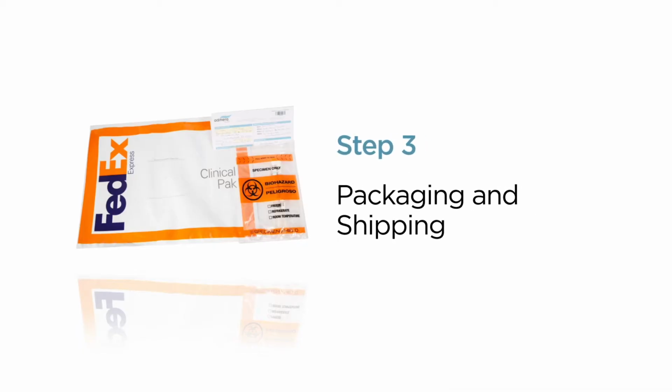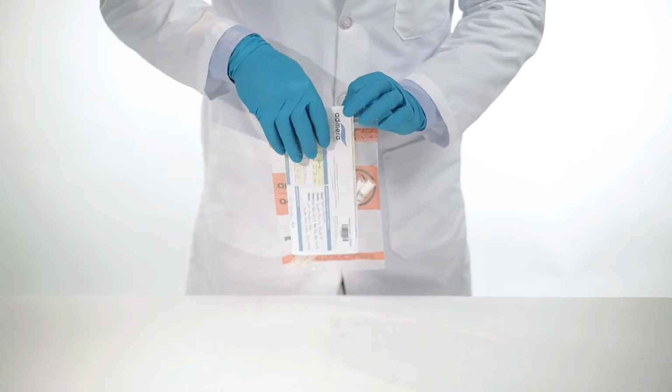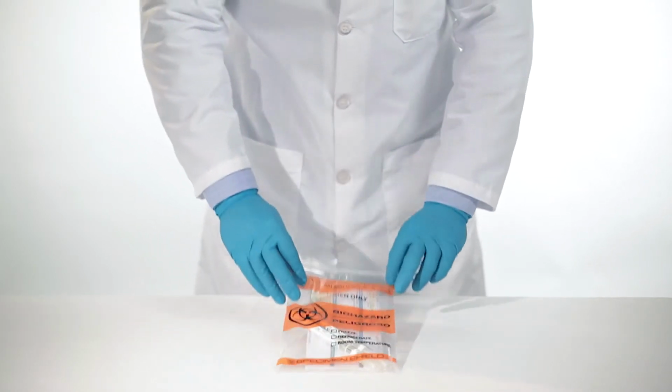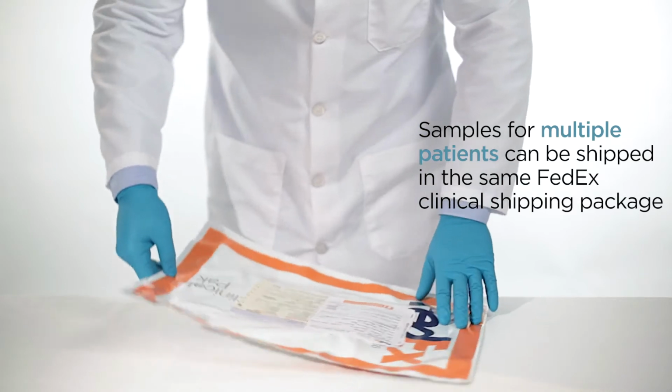Step 3. Packaging and shipping. Insert the completed signed test requisition form and signed informed consent into the document pouch on the outside of the biohazard bag containing the 2 buccal swab samples. Place the biohazard bag into the pre-addressed FedEx clinical shipping package.